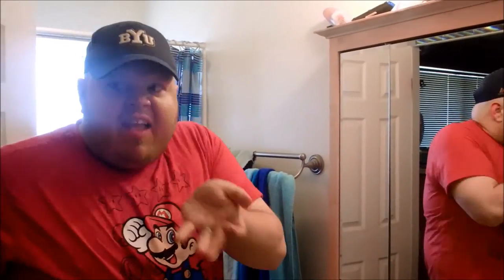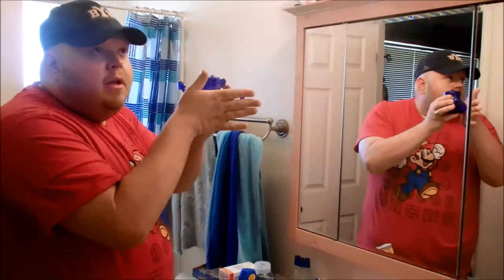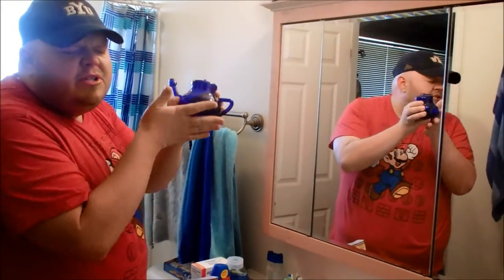I've let the water cool. Let me test it — okay, it's plenty cool, that would be great up my nose. So first step: you've got your water, you've got your neti pot. Remove the lid. Three wishes, three wishes.